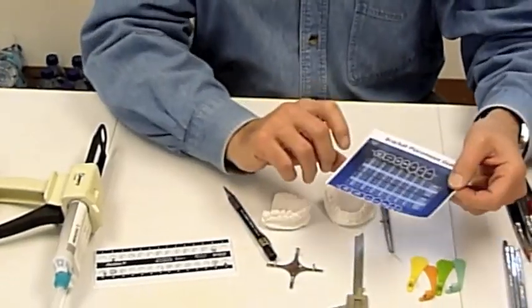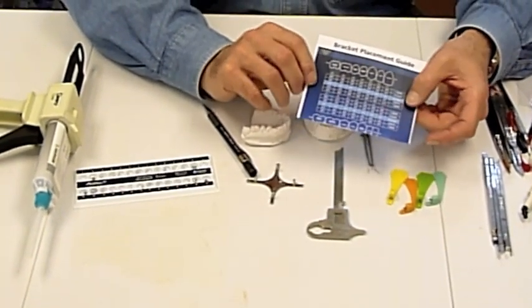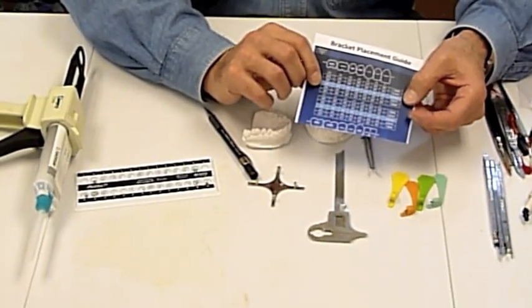We use the bracket placement guide to determine the appropriate position for the brackets and the tubes on the teeth.